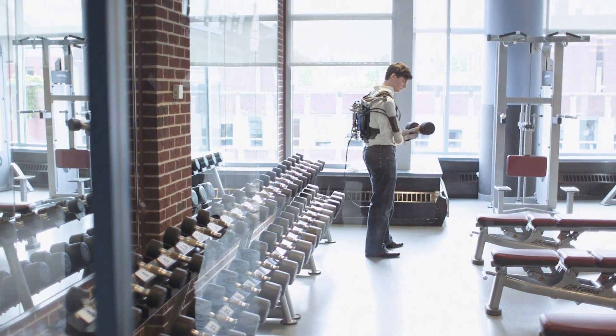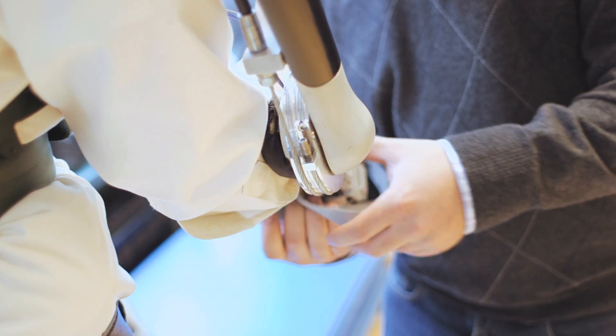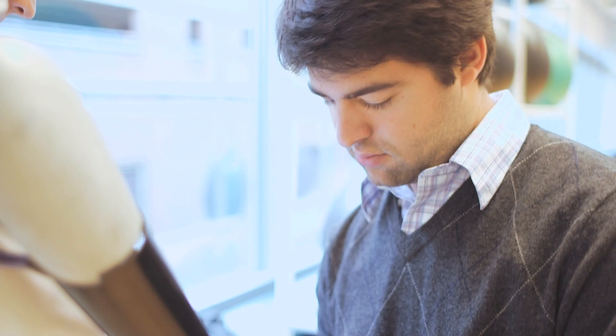Occupational lifting involves jobs where you need to repeatedly lift heavy loads. The problem is that people get tired, suffer from fatigue, and develop bad lifting form which leads to injury.